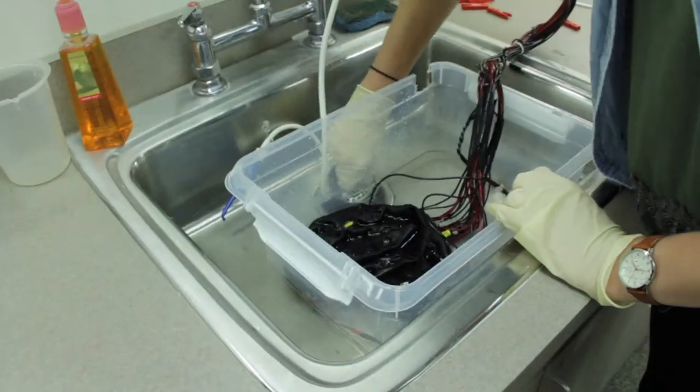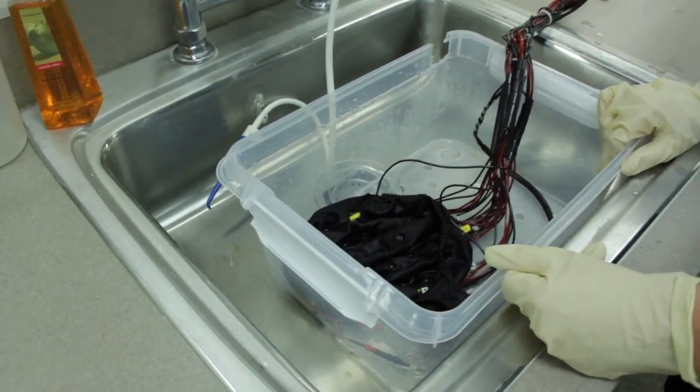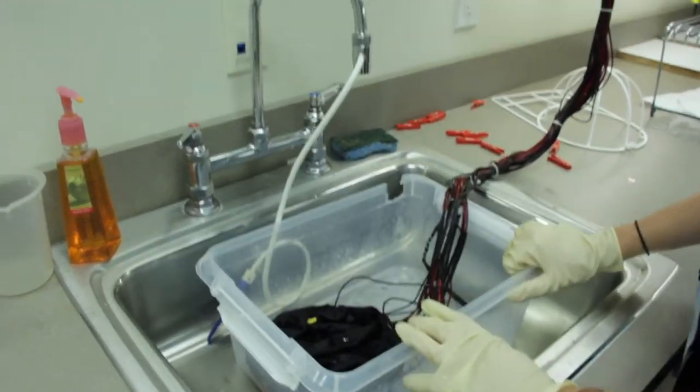Drain the sink of the soapy water. Be sure to not let any electrodes get snagged or sucked down the drain. Rinse the cap in the wash tub with hot water.